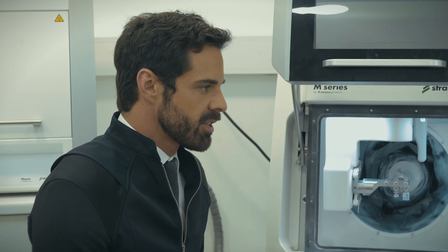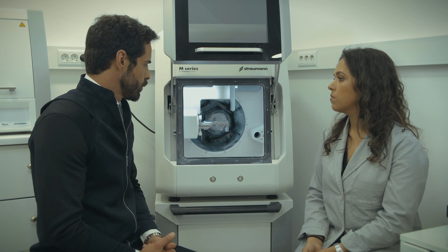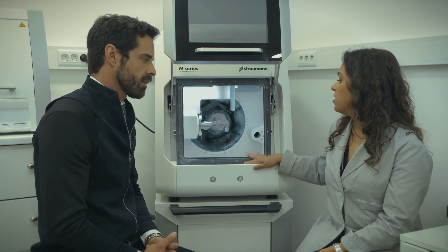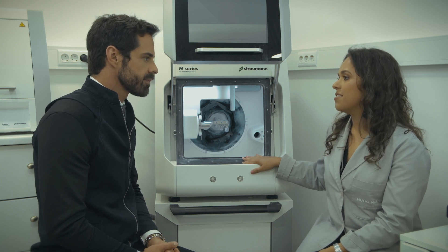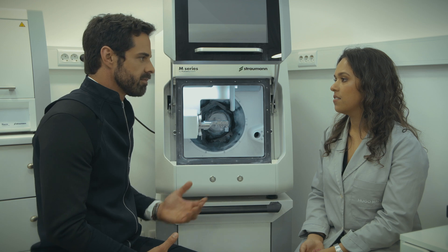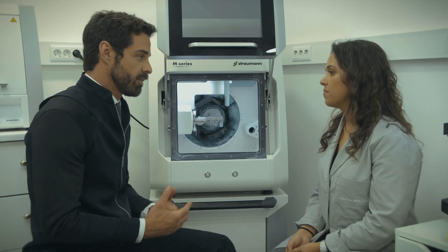How does the milling machine receive the information to produce this kind of work? This milling machine is connected to the software and is very fast. And what kind of materials can you mill in this machine? Lithium disilicate, PMMA, zirconium, titanium — almost every kind of material.